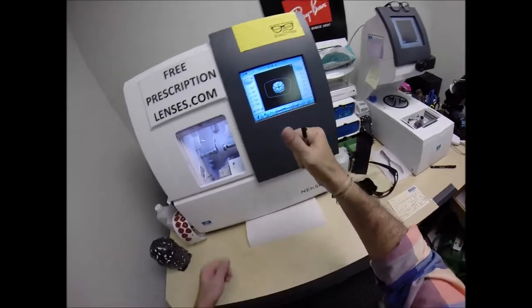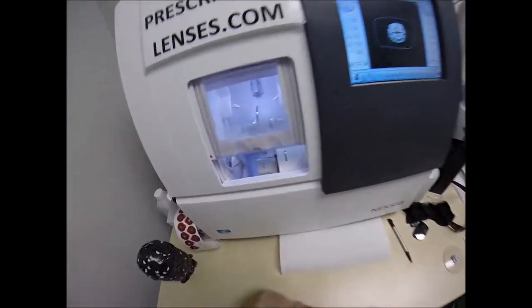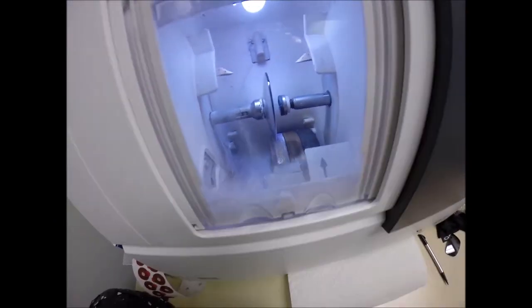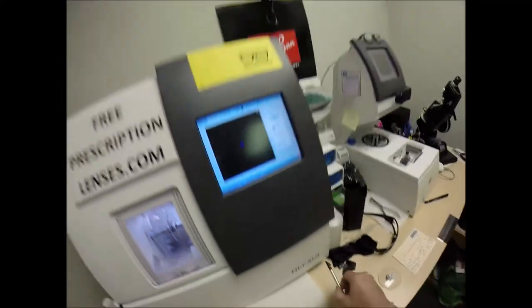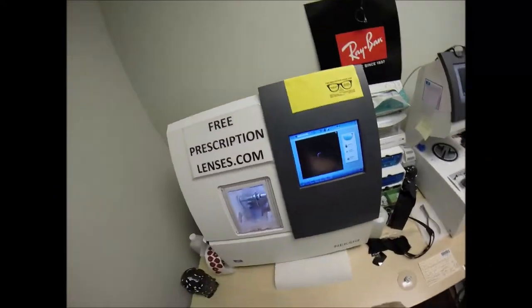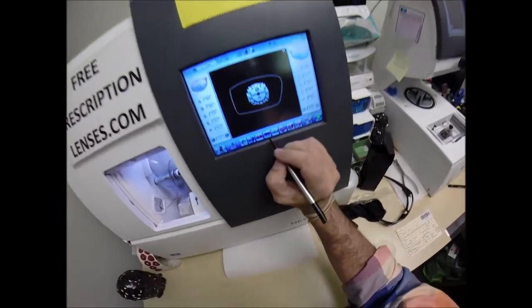Hit the green start button. The door closes, the clamp shuts. Usually this button says auto, I'm going to put it on manual. I'm going to do this manually. Normally, it will trace the shape of the right side of the frame, making sure that it's large enough to fit into the frame.